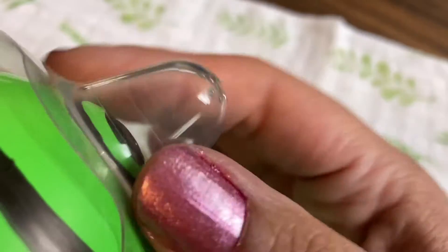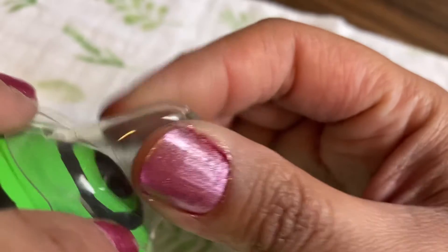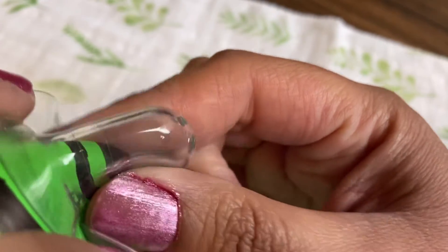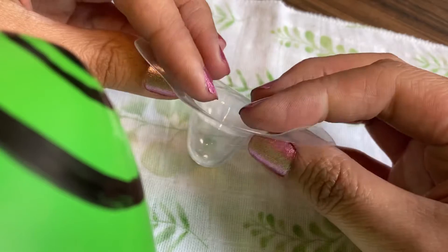Let's start with learning how not to apply a nipple shield. You don't put it on directly like that without trying to draw the nipple into the shield, because when baby latches they can pinch the silicone tip or pinch your nipple tip, which is very painful and can lead to inadequate milk transfer.